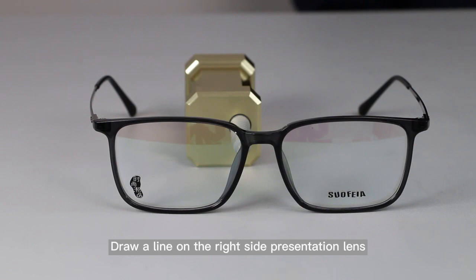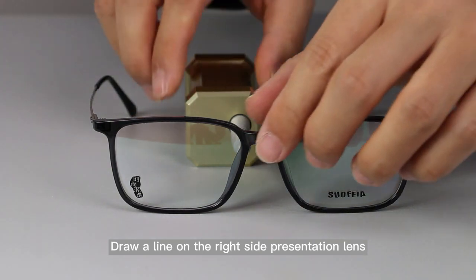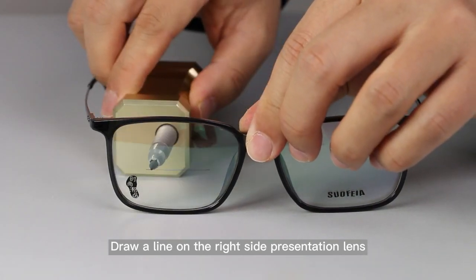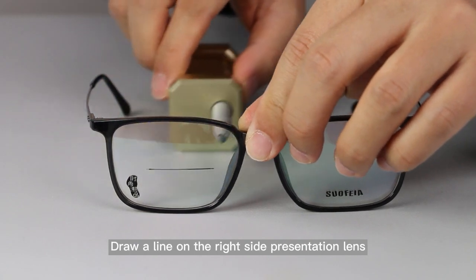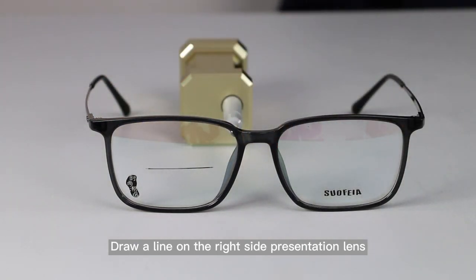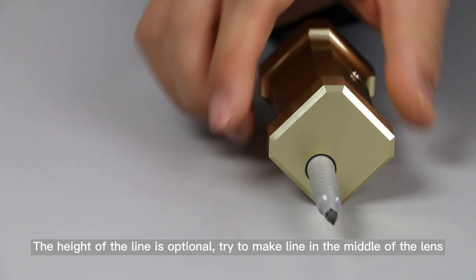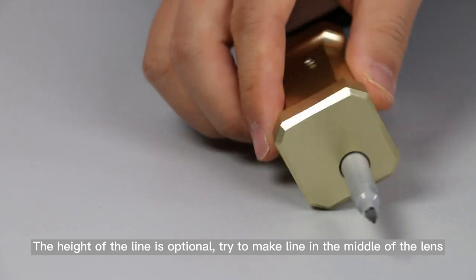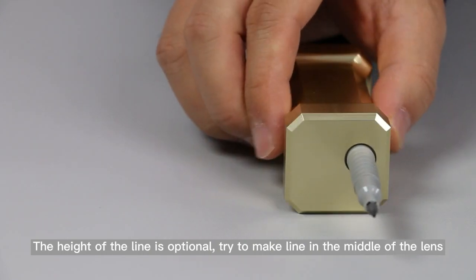Draw a line on the right side of the Presentation Lens. The height of the line is optional; try to make the line in the middle of the lens.